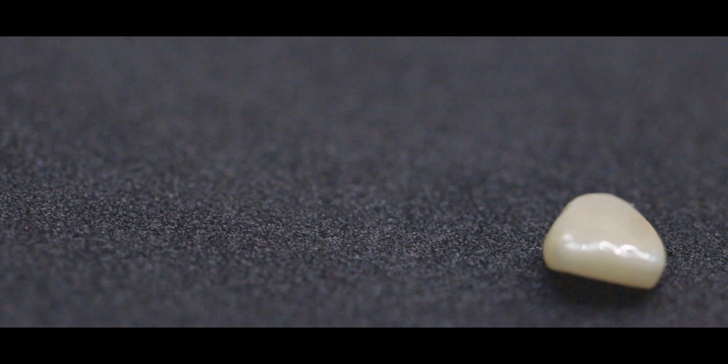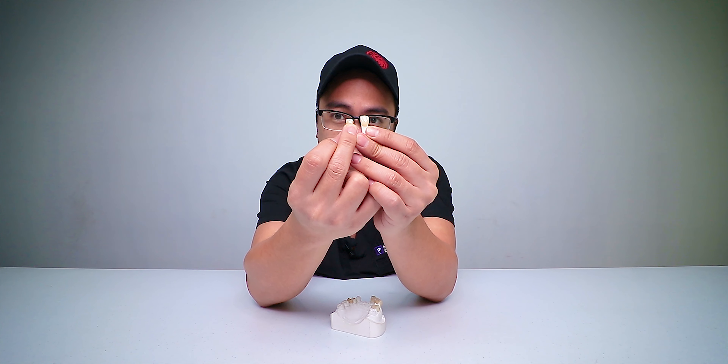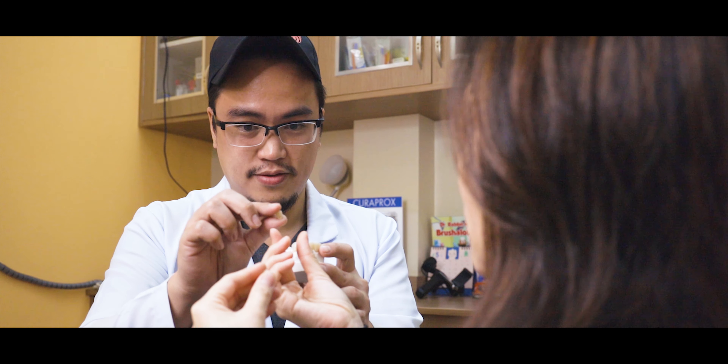Next, it also has a veneer, which again sits next to a full crown, so these two side by side allow you to show the patient how much more tooth structure you're removing, or how much bigger a crown is versus a veneer. When I show the difference, patients are always like, 'Oh okay, so the crown goes all the way around while the veneer is just in front.' Them being able to visualize this in a size that actually replicates what their tooth is makes a big difference.